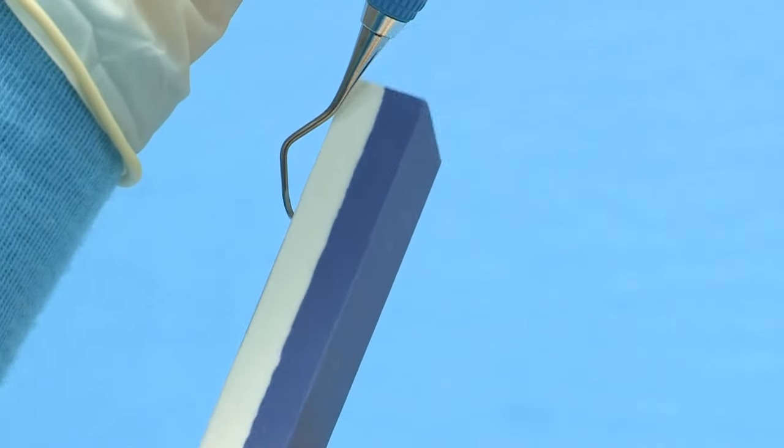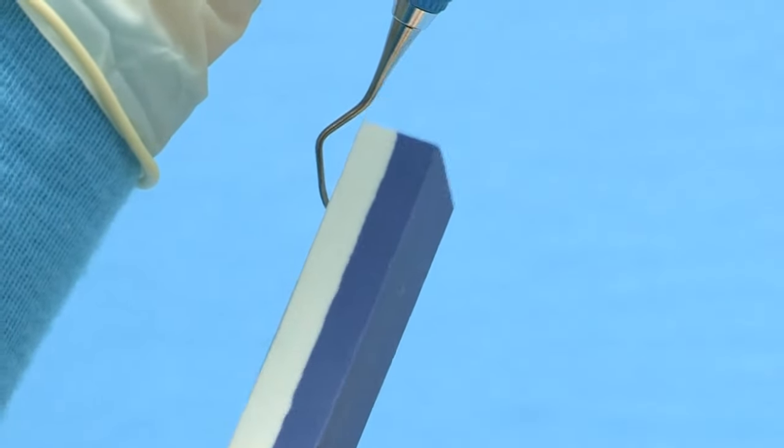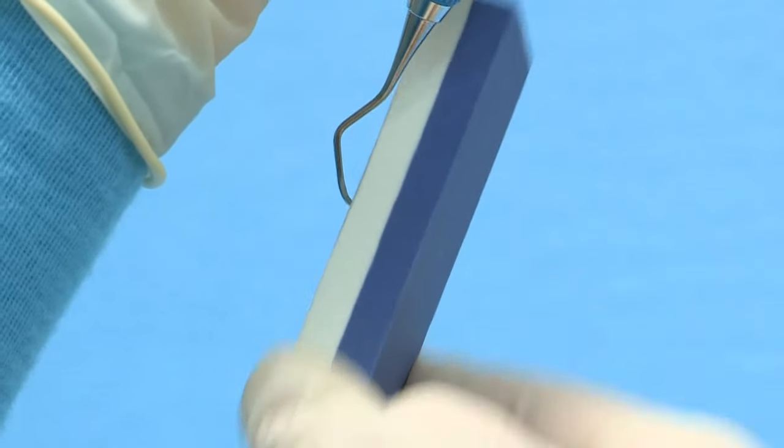Repeat the sharpening process starting at the heel third and progressing to the middle third and finally to the tip third of the blade.